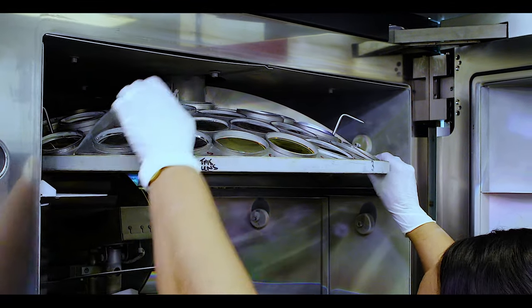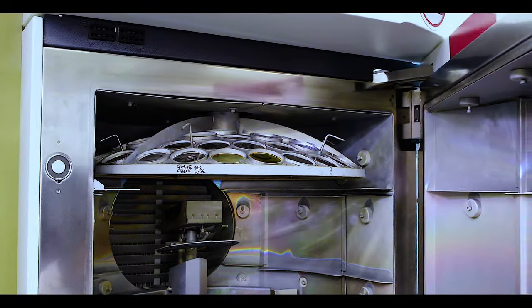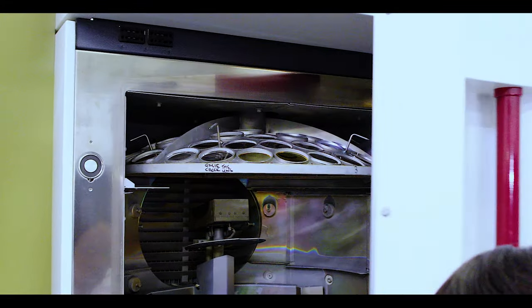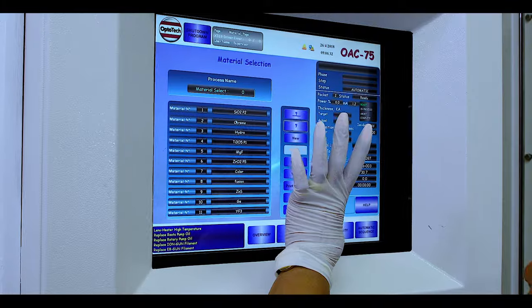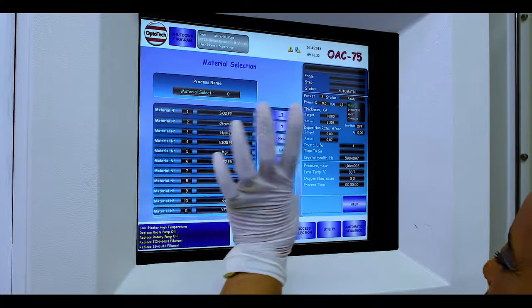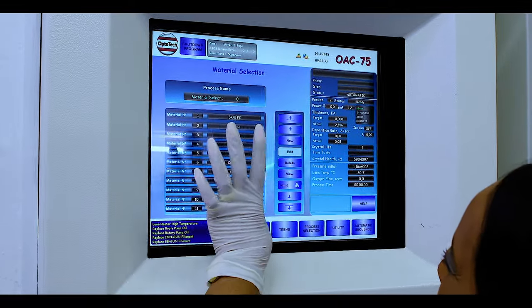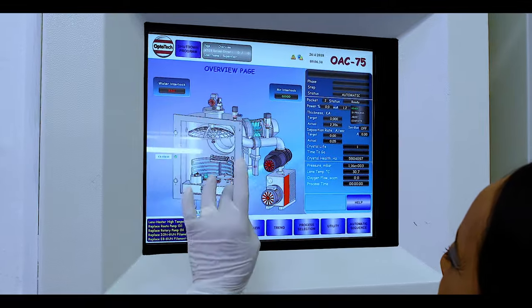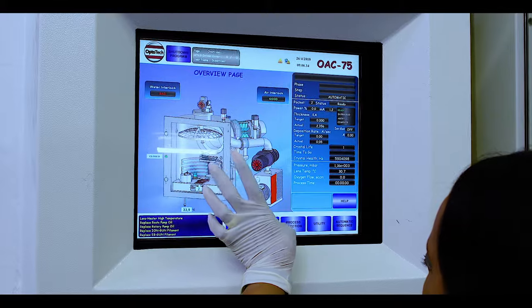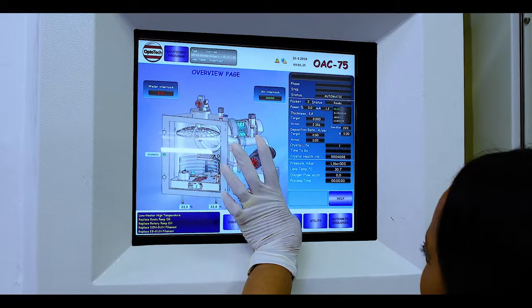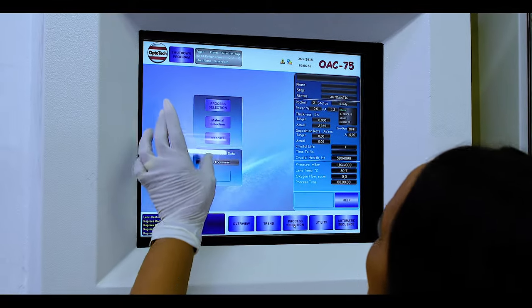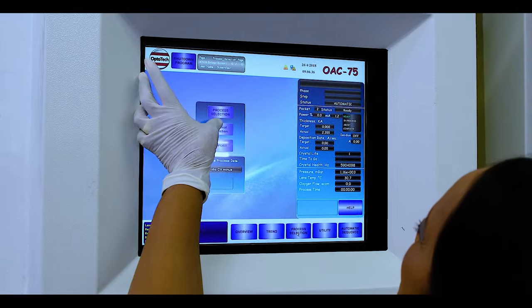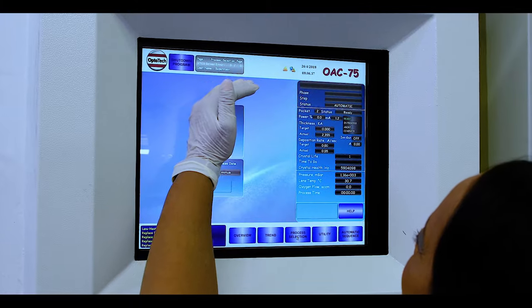The application of the anti-reflection coating or mirror coating is carried out in a high-technology vacuum chamber. The final coating applied is made up of a number of very thin layers to minimise reflections, improve clarity, and improve smudge resistance and dust collection.